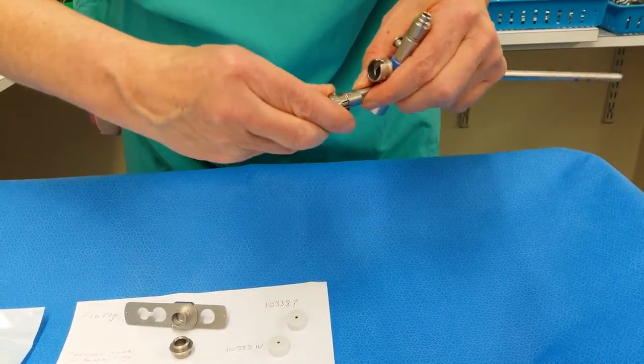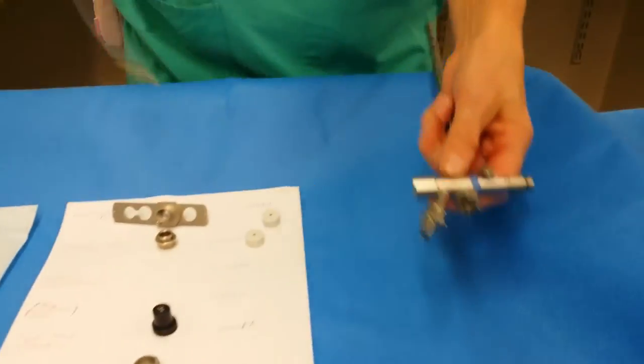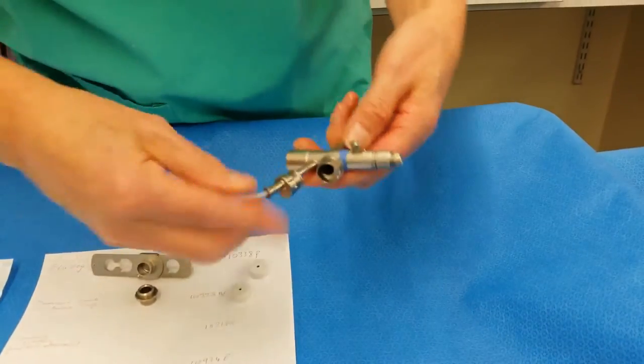You just push them in and then you can put your catheters, your suction catheters, through here like that.